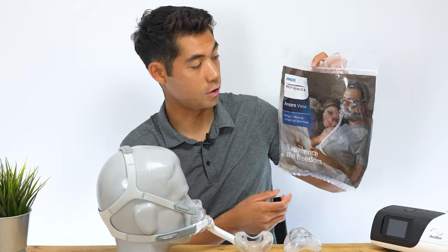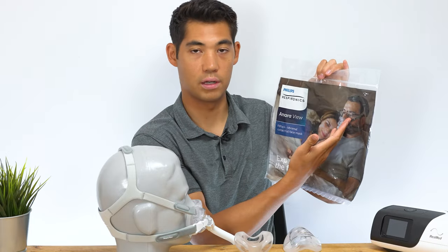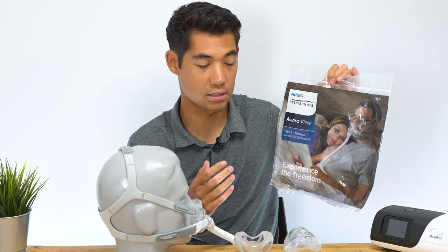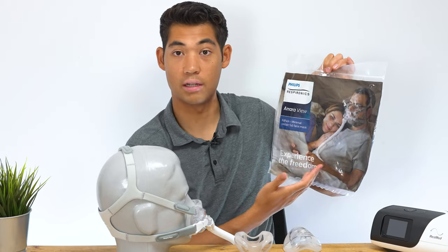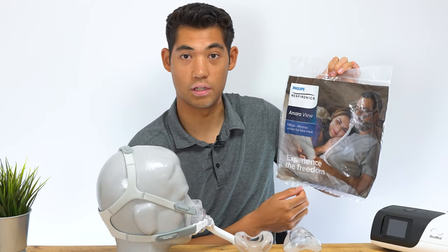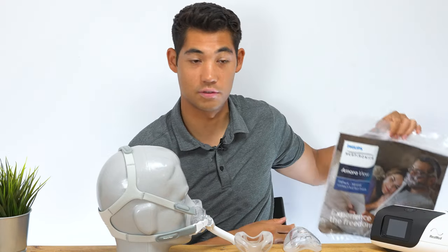It's great for people who might want to do some light reading — they have reading glasses on, and the glasses aren't interfered with by the full face mask. It allows you to read in comfort and have your partner rest on your shoulder comfortably. It's a very cute image — thank you, Philips Respironics, for that.